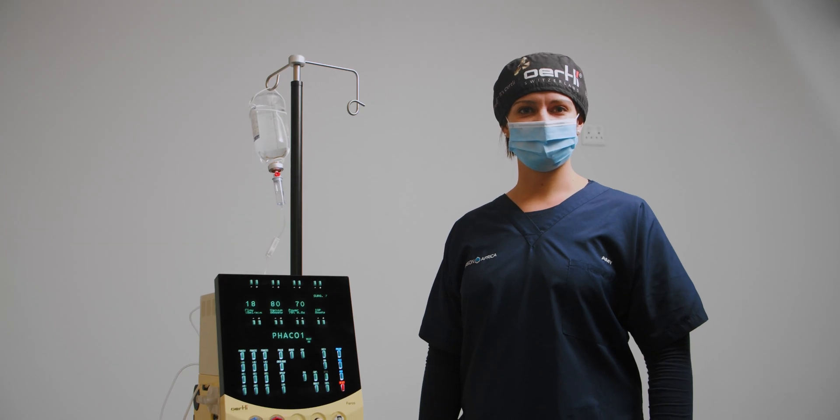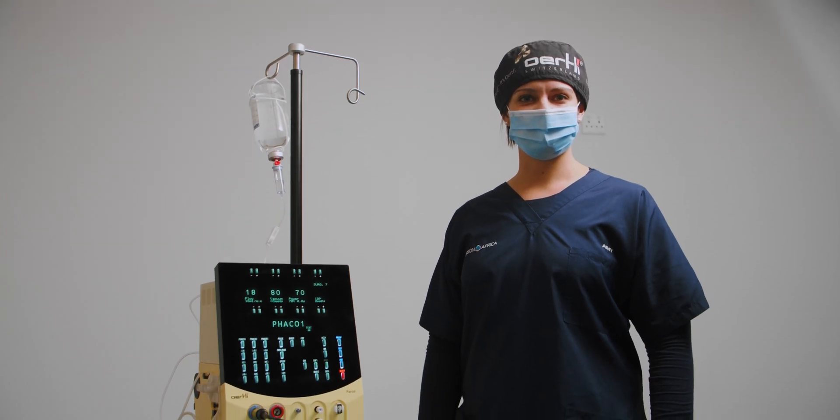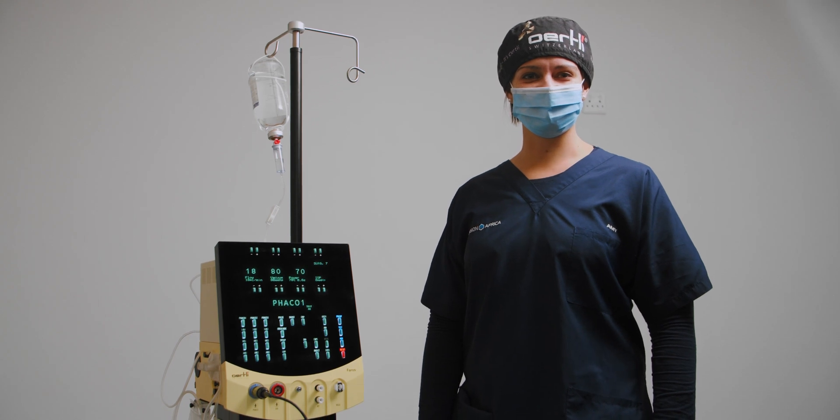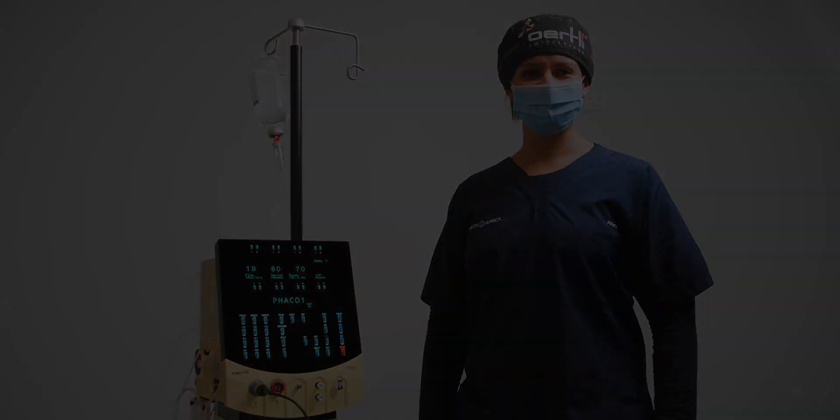Please remember that this is a basic guide for your setup. Refer to the Oertli user manual for complete instructions. Thank you.